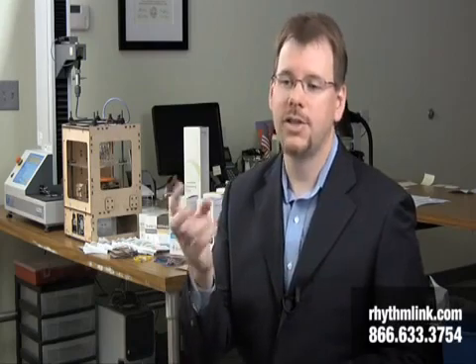We also have paired subdermal needle electrodes, which are also very popular. A paired subdermal needle electrode is essentially just two lead wires — two electrodes that are either twisted together or the lead wires are bound together. The advantage is that instead of opening one sterile pouch for one electrode, you open it and there are two electrodes per pouch. It saves time. Generally, all electrodes are placed in a pair with a negative and a positive — an anode and a cathode.